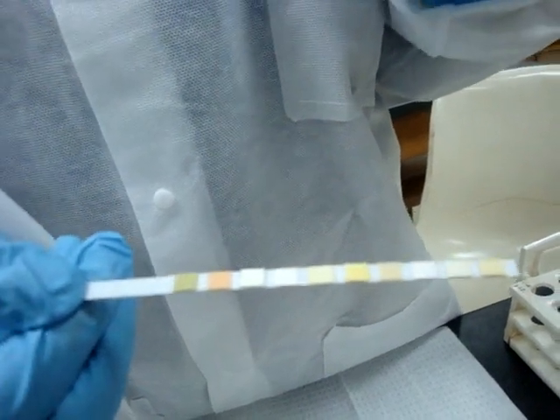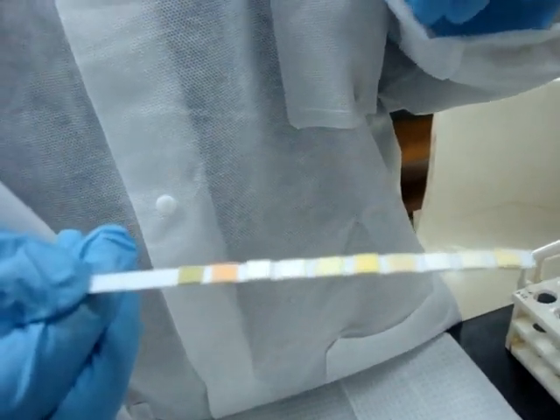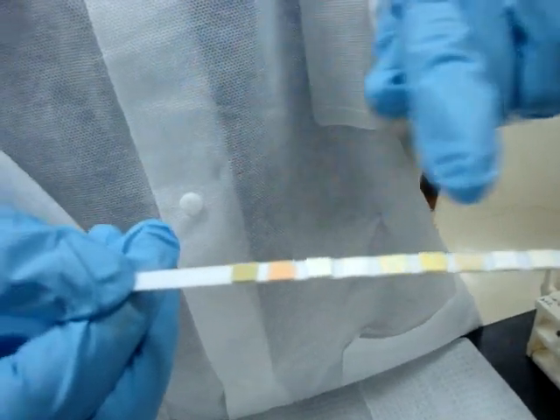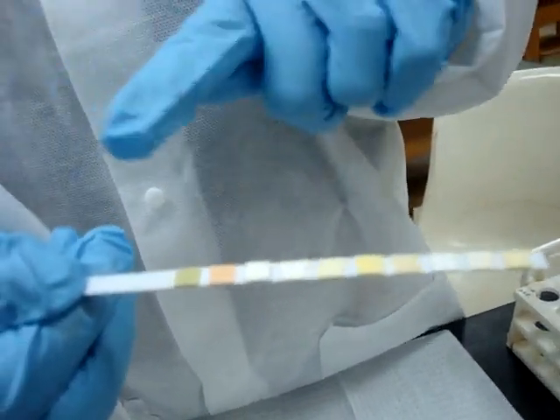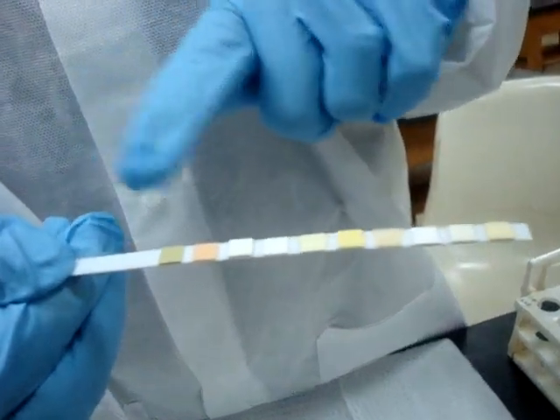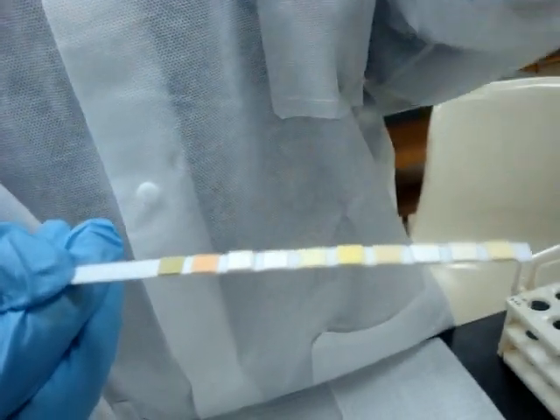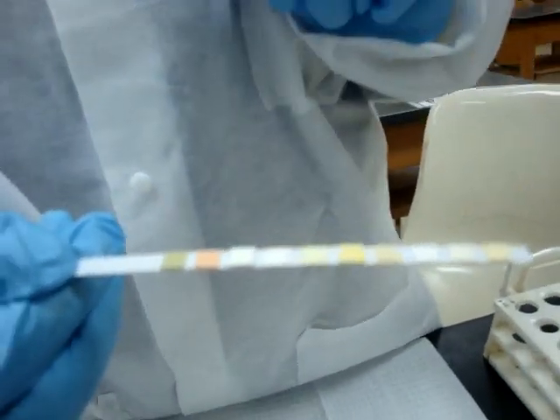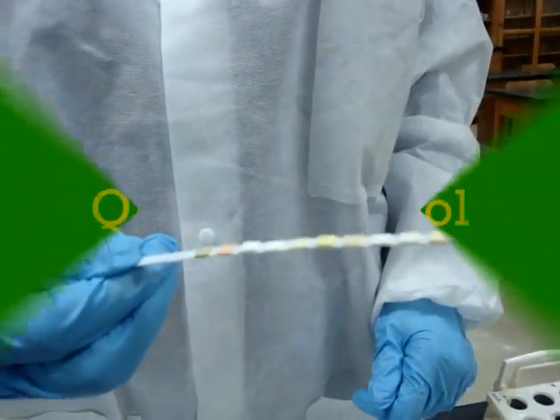As we do our discussion on the chemical analysis of urine, you will find out what is on every pad and the chemical reaction of every pad, the reagents on every pad, and the colors that they will turn. But this is your dipstick.